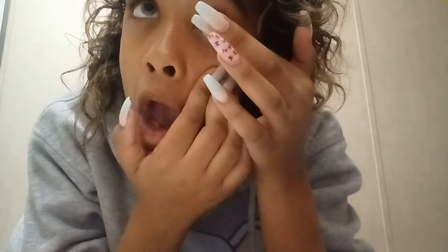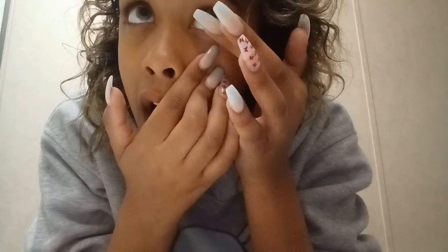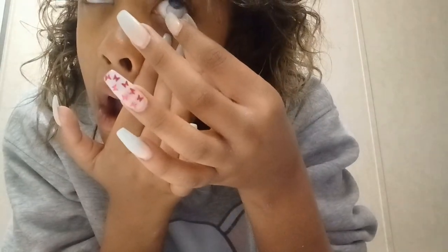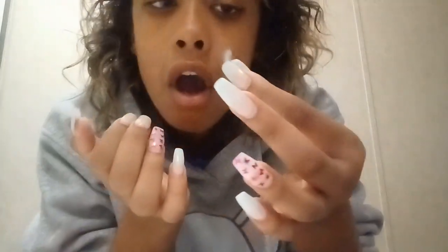I've heard people take them out by sliding them, and I'm scared to do that, but I'm gonna try. I already washed my hands. My eyeball feels weird — I got it!